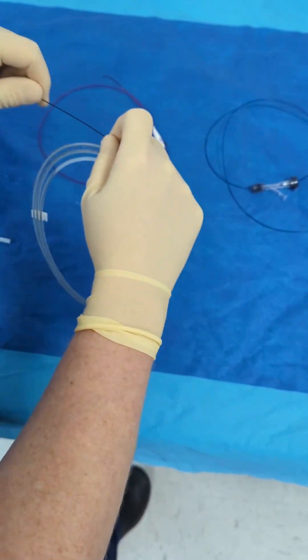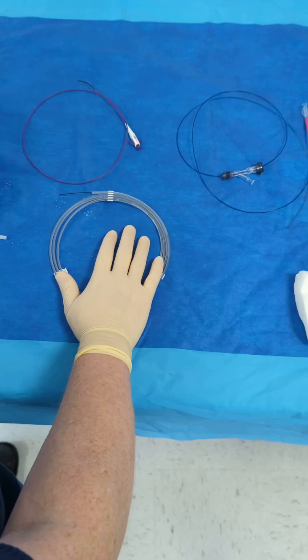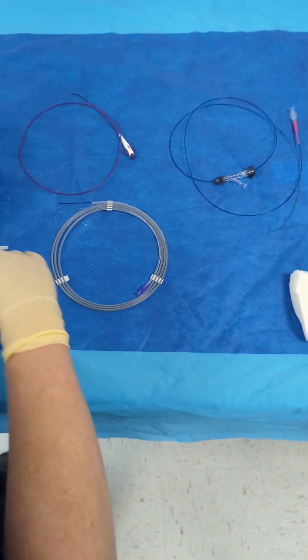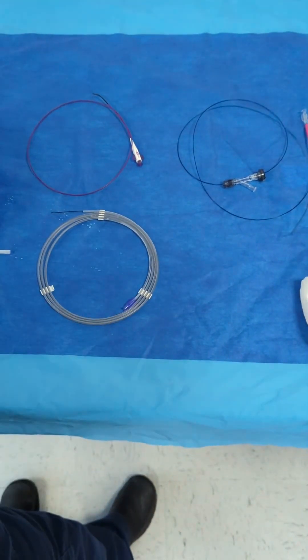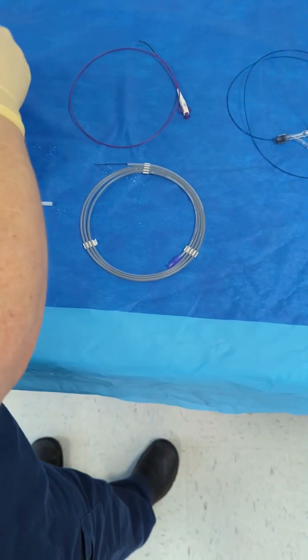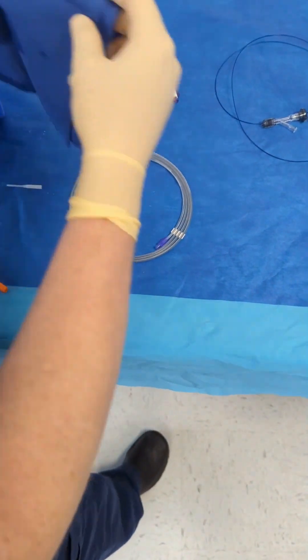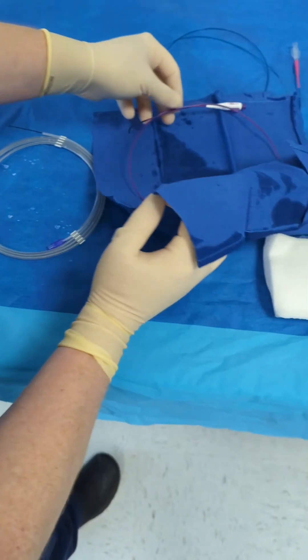Someone commented that they like to re-hoop a lot of wires, and there's a reason why I don't my intervention wires, and I'll get to that later. But if these were, say I had to work with like three on the back of the table and I was limited space, I take a towel and get it wet.